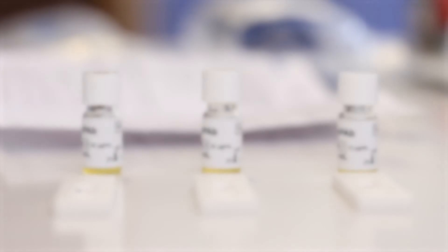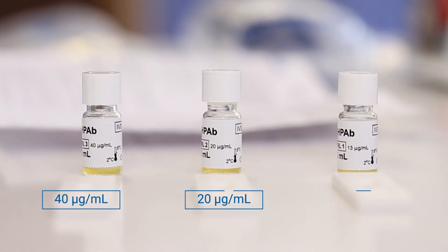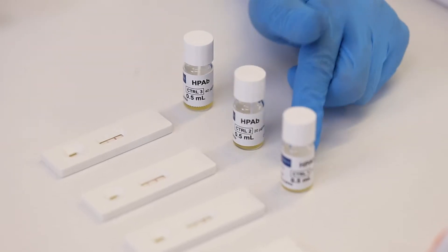This test allows you to have a quick and accurate result, both qualitative and semi-quantitative, when used with control serum.